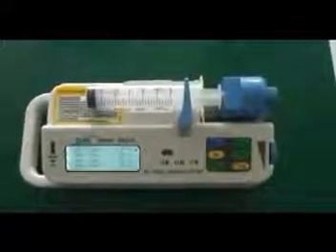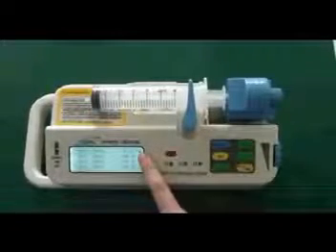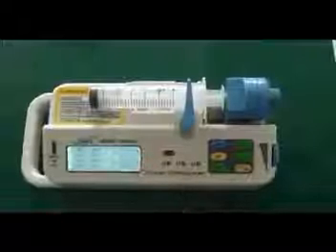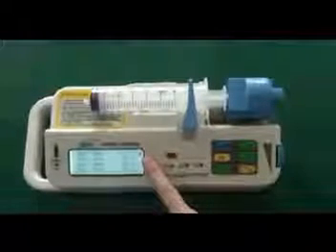Next, please look at the LCD. You can see there is a lock symbol here. The parameters cannot be changed under lock condition. You need to unlock it first.